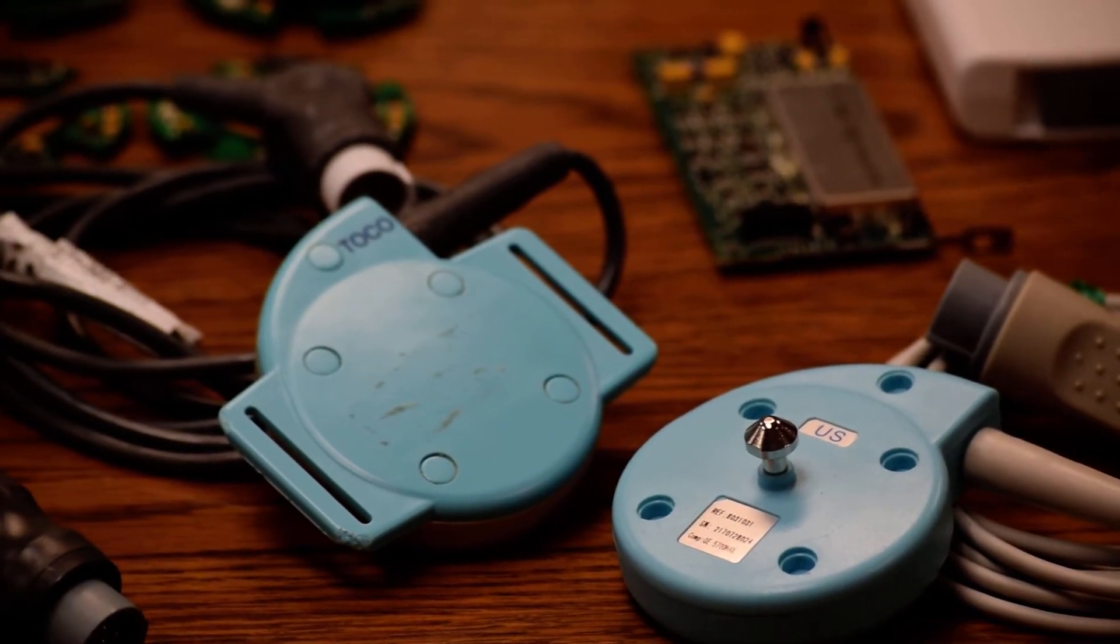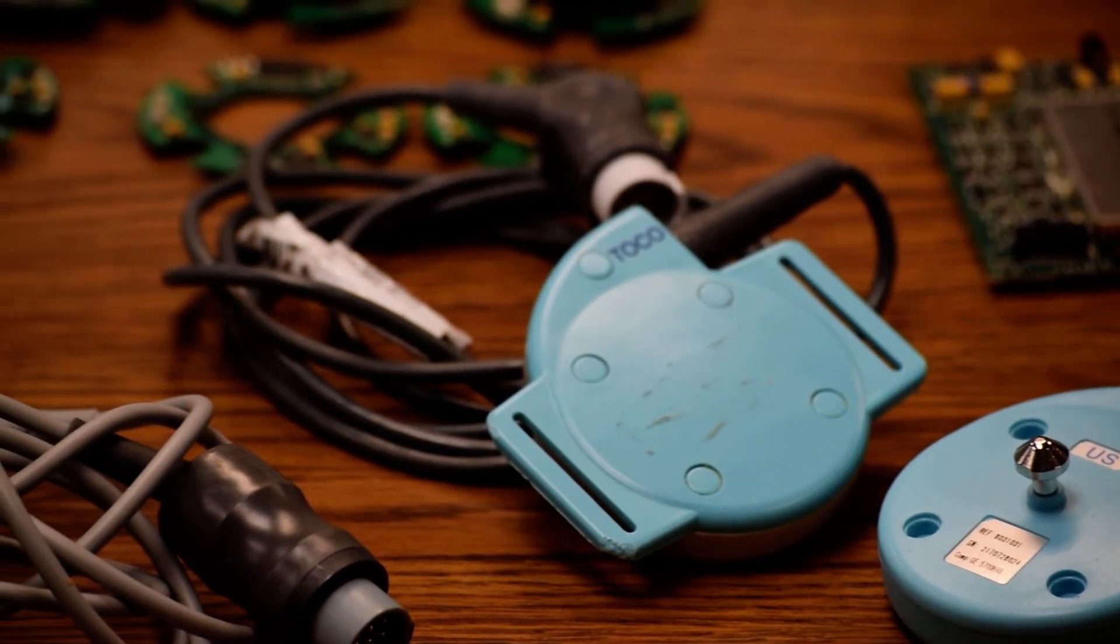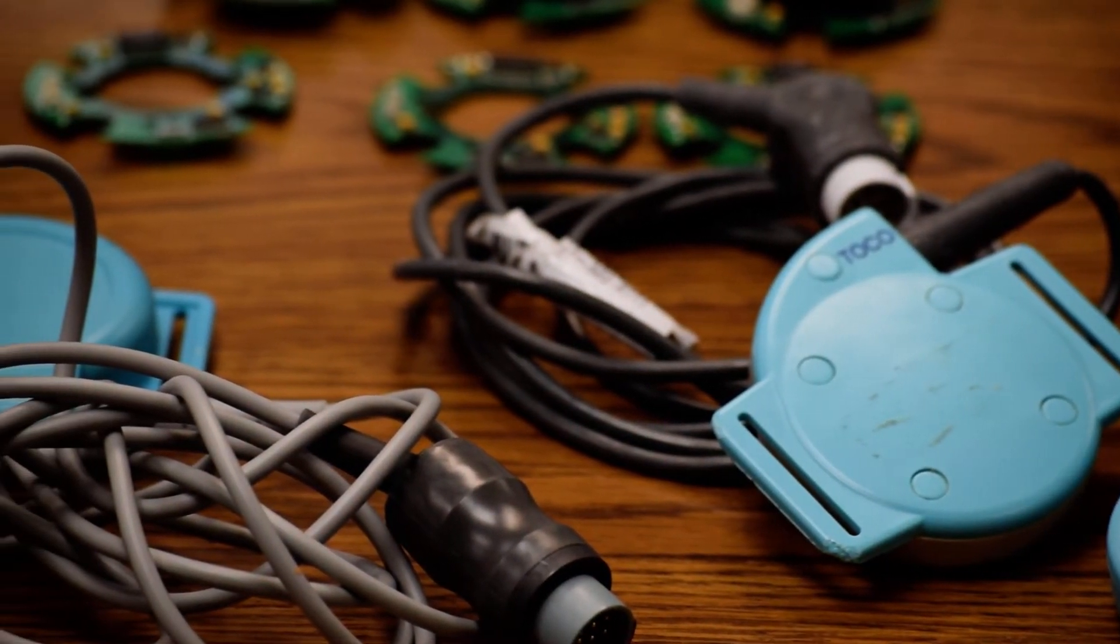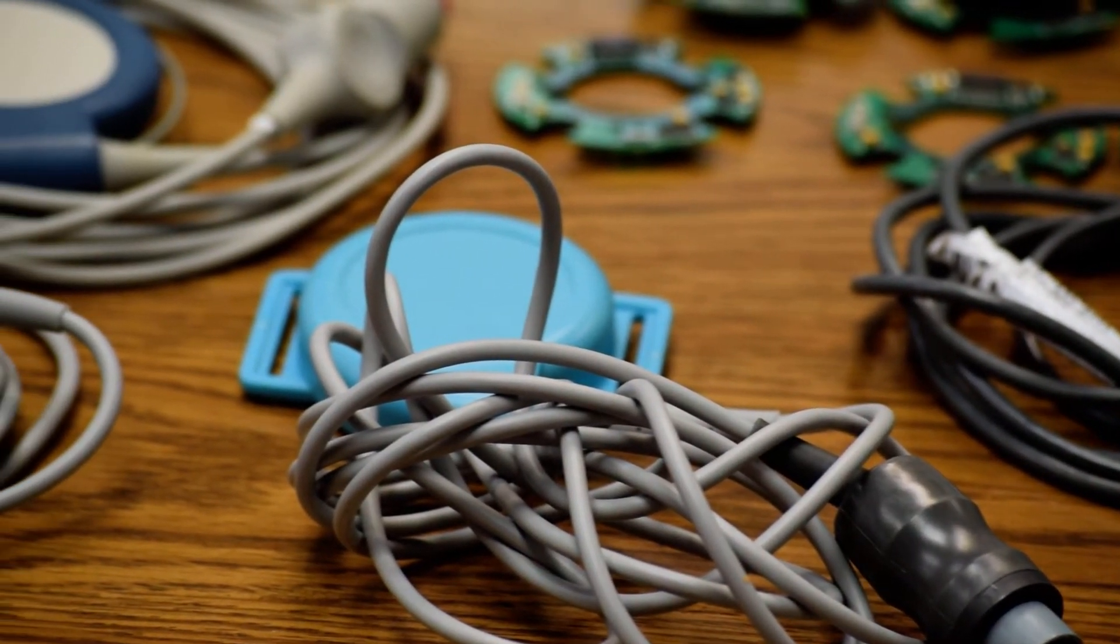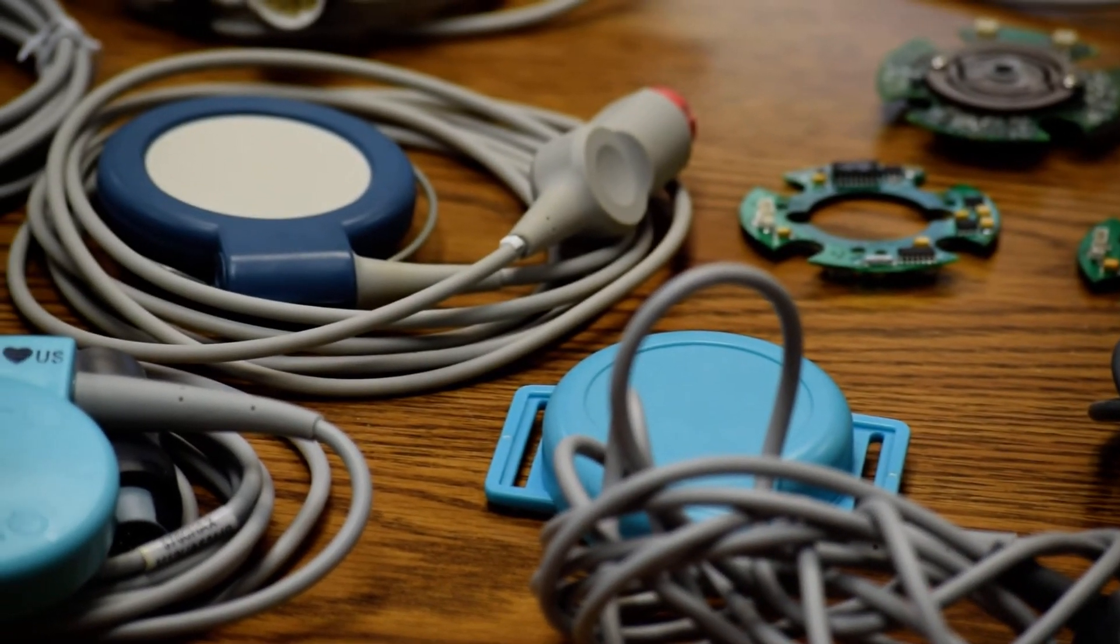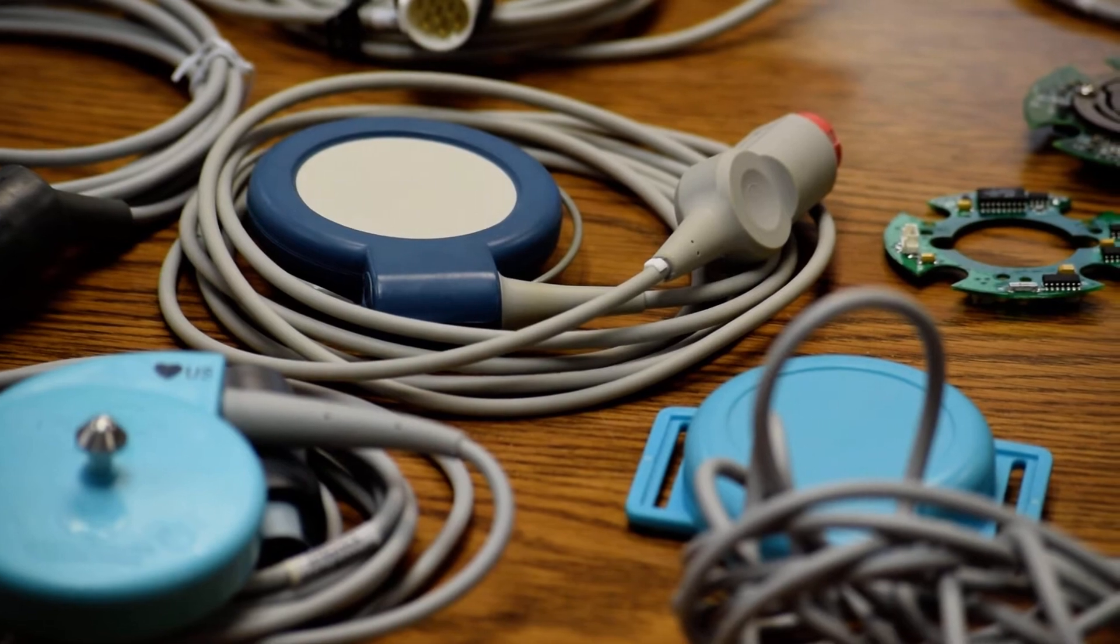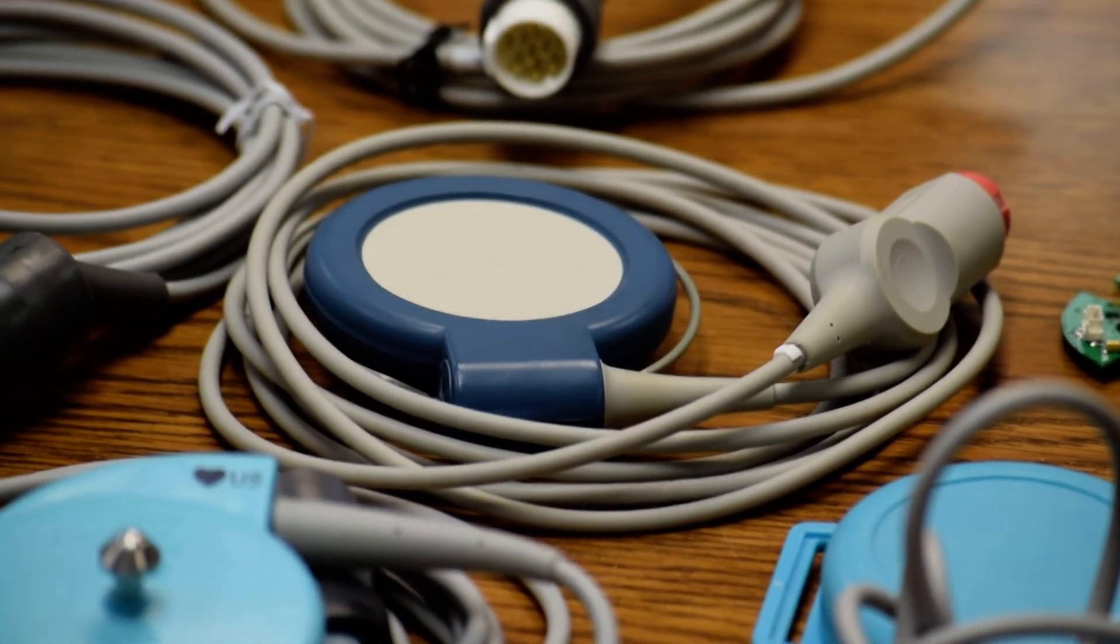The blue color transducers seen in the video is from HP Philips. The original cable is so good. If properly handled, always coiled or stretched out, it lasts easily beyond 5 years without any performance issues.